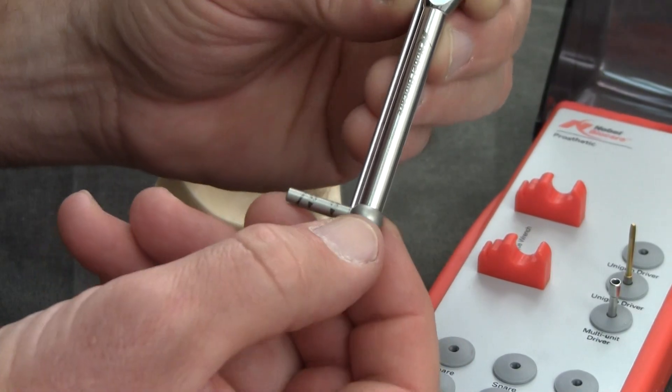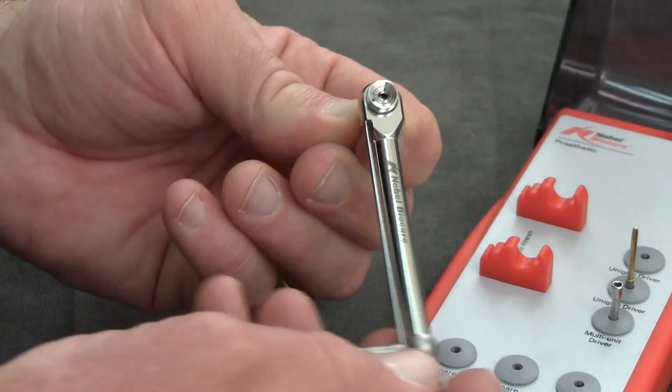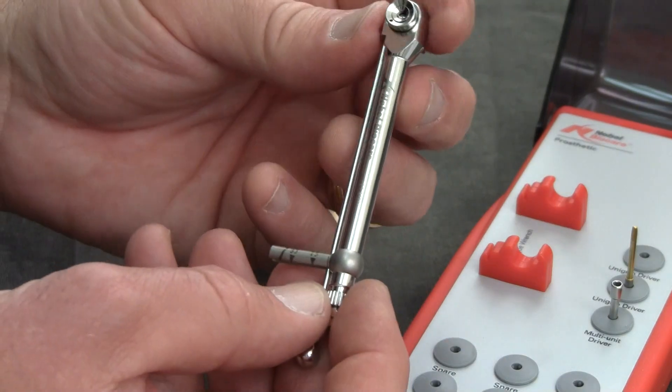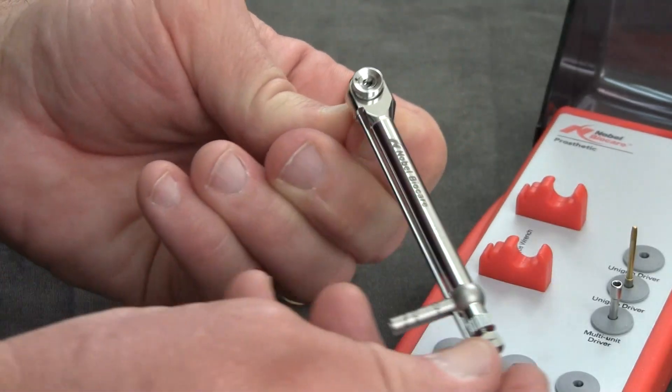And if it's loose, you will not hear that ratcheting sound. It's simply just swinging freely. Therefore you have no tightening of the screw whatsoever. So simply tighten it all the way to the shaft until you hear the ratcheting sound.